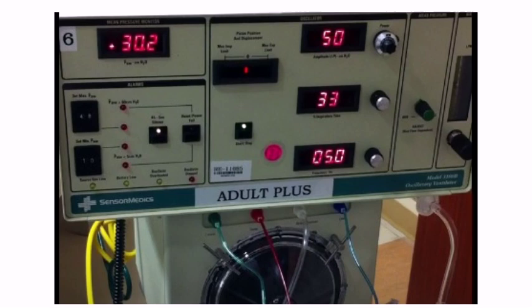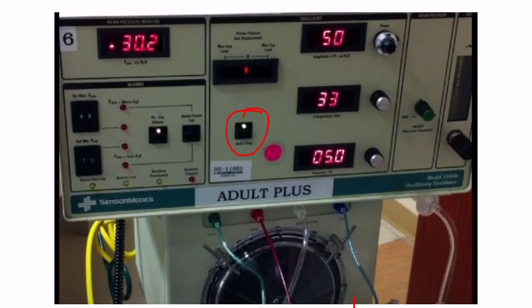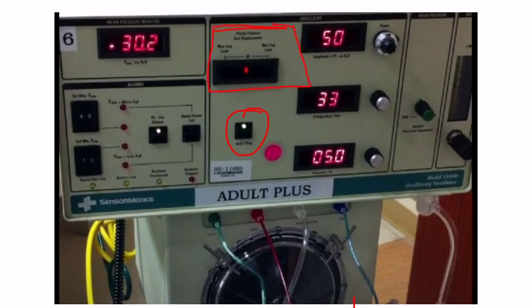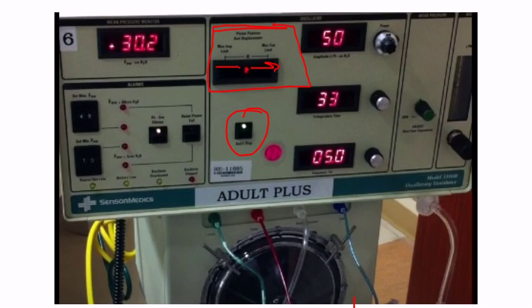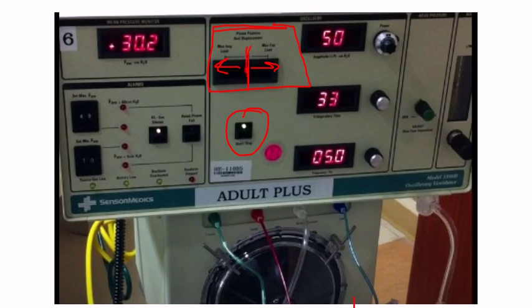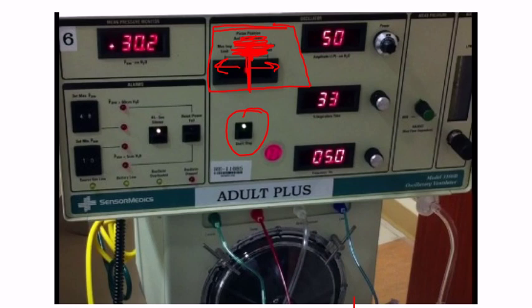So I have this little button here — this little button is a start/stop button. We use it to start and stop the ventilator. I have this little readout here, and this little red dot will move this way and that way as the ventilator oscillates. This is what we use to calibrate the piston, because we want that piston centered and oscillating like that. So it helps us calibrate it and keep it centered.